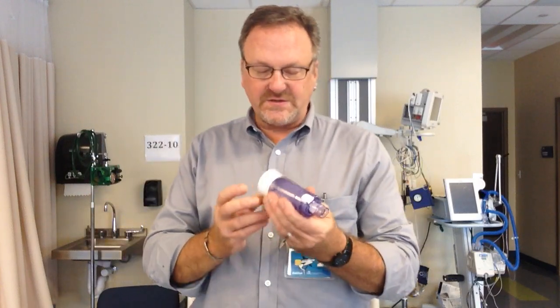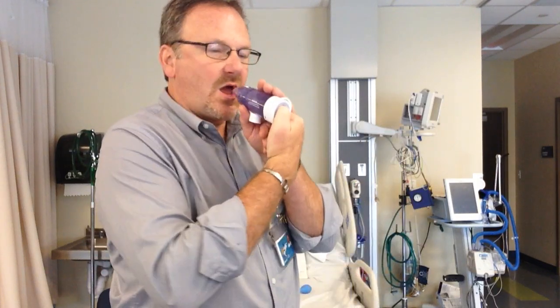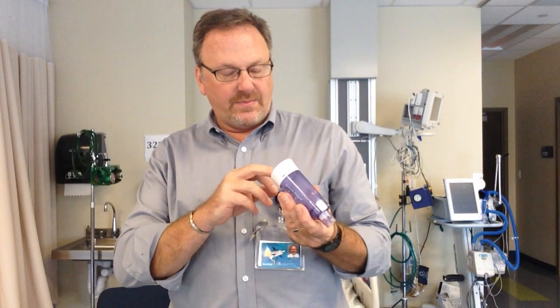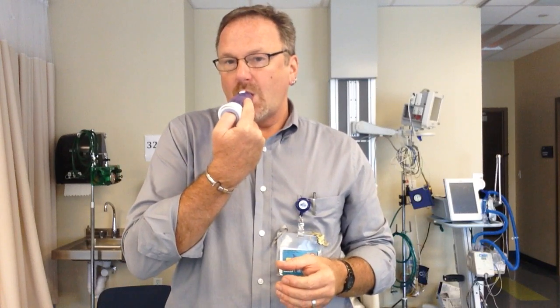The other thing the spacer does is tell you if the patient is inhaling too fast. You do not want to hear a whistle. That means they're inhaling too fast. The whistle operates at about 20 liters per minute. You want the patient to do a slow, deep inhalation — just like that.